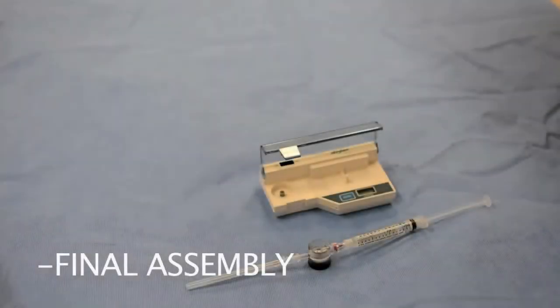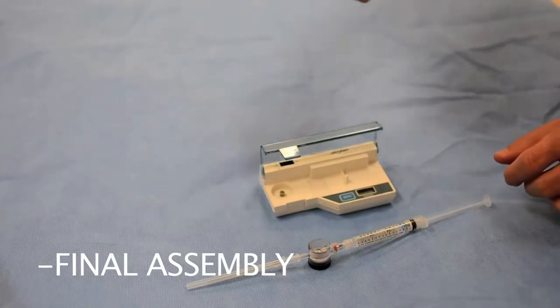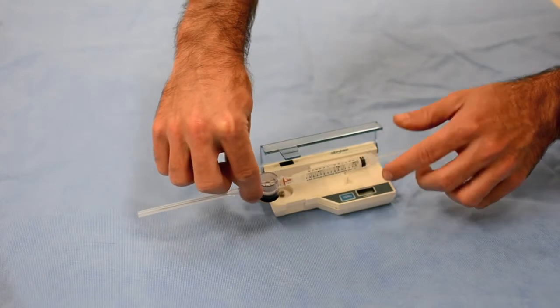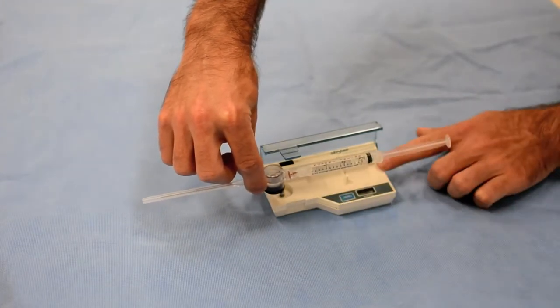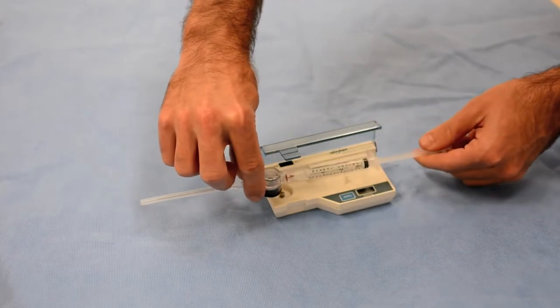Next step is to align the disposable components into the sensor monitoring. In this step, you are going to place the coupler into the sensor well and be sure that the syringe flanges line up flat with the sensor, such that the door will shut cleanly on the monitor.